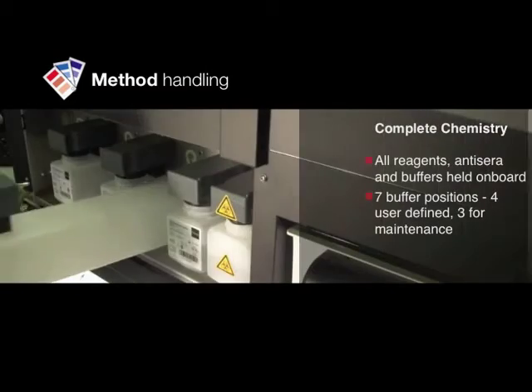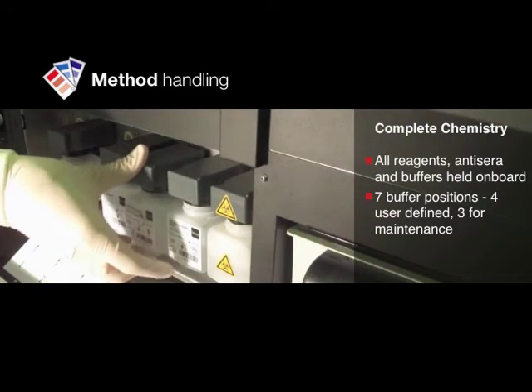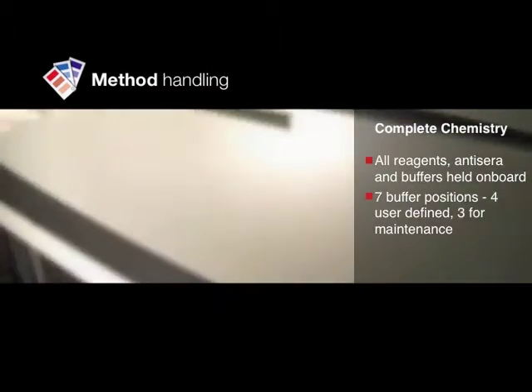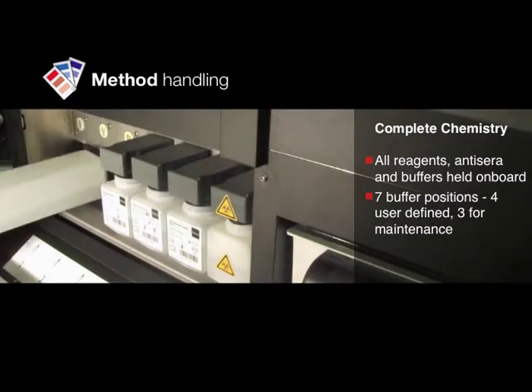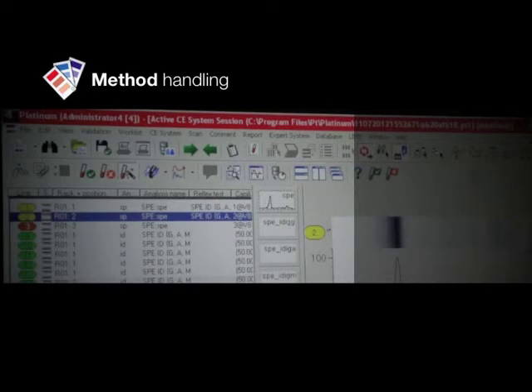All necessary buffers can be held on board, making switching methods user friendly. Our advanced software and barcoded reagents mean that traceability is automatically taken care of.